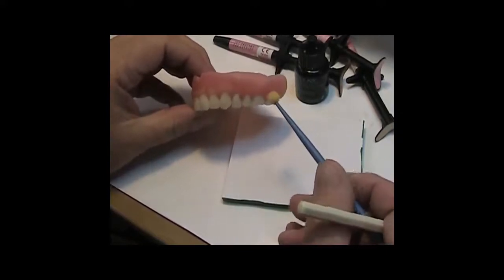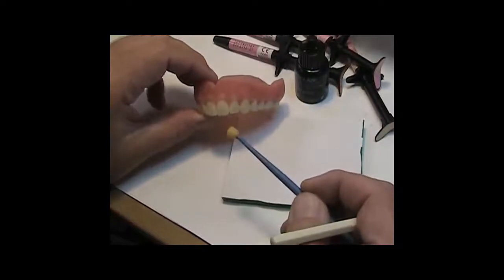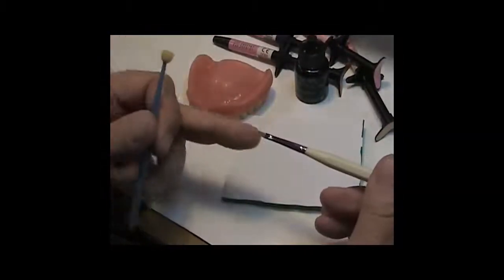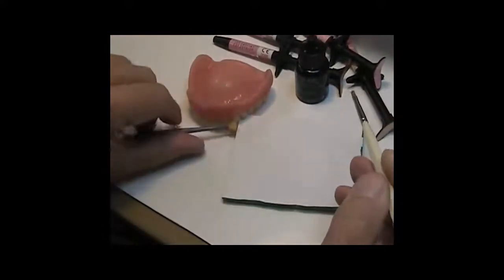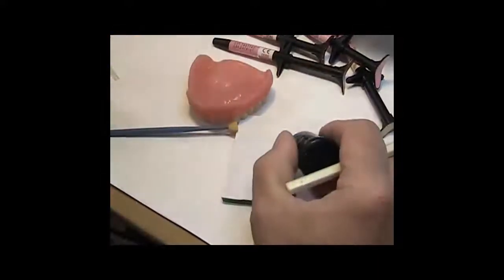So we want to try to get a surface that will not attract biofilm, and thus will not create the concretions, which eventually turn into calculus. So with that in mind, I've got to put that surface on. So I've got this little sponge brush, dedicated tip for only OptiGlaze, and the OptiGlaze Clear. So I've put a little bit of that out.